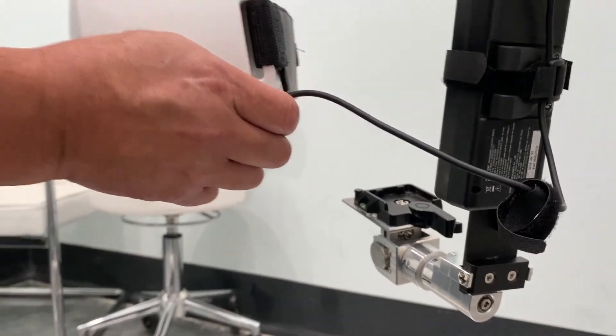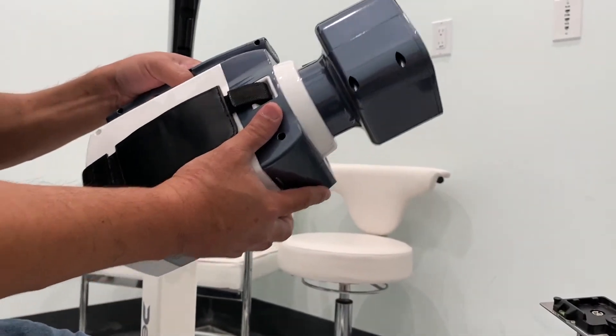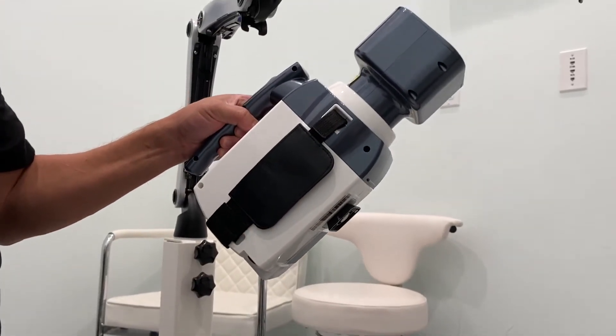At that point, you can go ahead and remove the battery cable and now your camera is a true handheld camera.